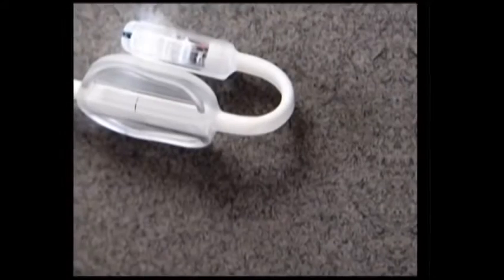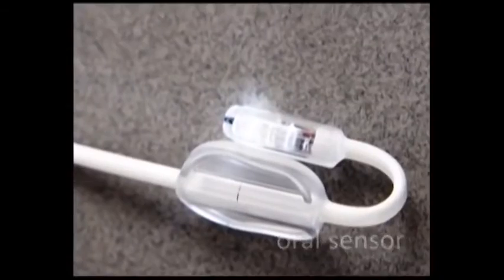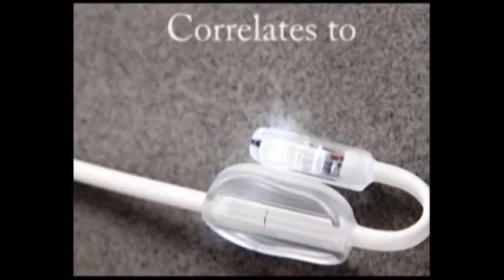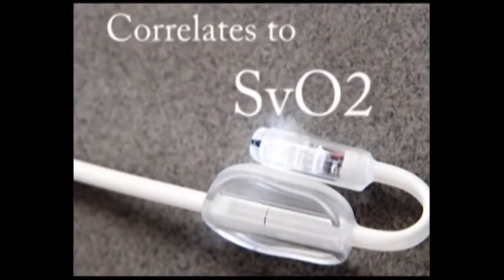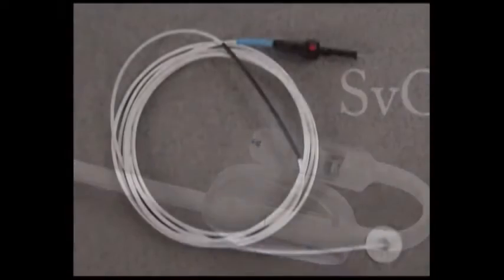There are multiple T-Stat sensors, each intended for a different clinical application. Here we see the T-Stat oral sensor, which monitors the buccal mucosa on the inside of the cheek. The oral sensor is used in the ICU and operating room to provide an oxygenation measure that corresponds to systemic perfusion and central venous saturation.